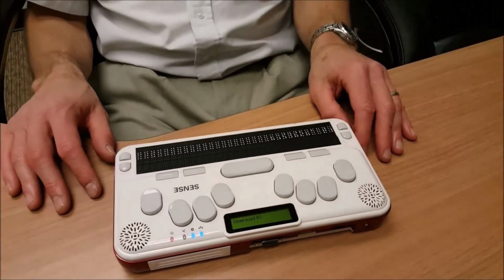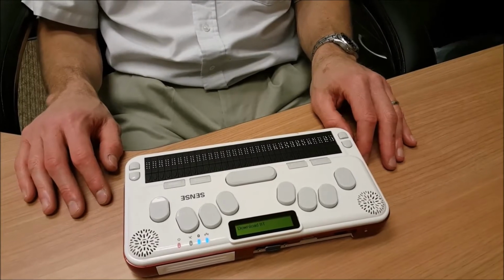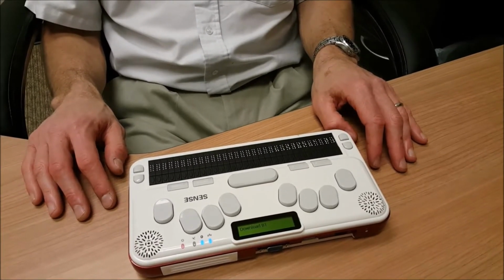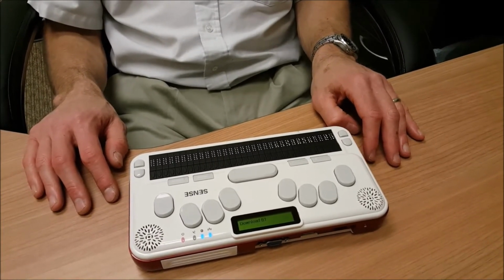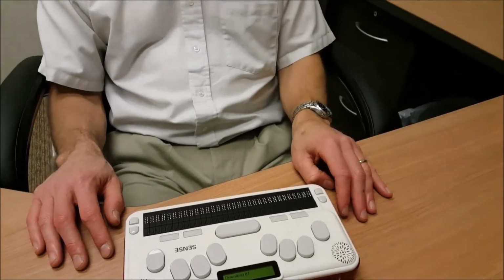So now the Harry Potter and Philosophy book has been downloaded, it's been unzipped, and it's waiting to be read with the Daisy player, since Daisy is our default file format that we chose for our book downloads on the Braille Sense. And that's all there is to it. So happy reading and enjoy your Bookshare account.